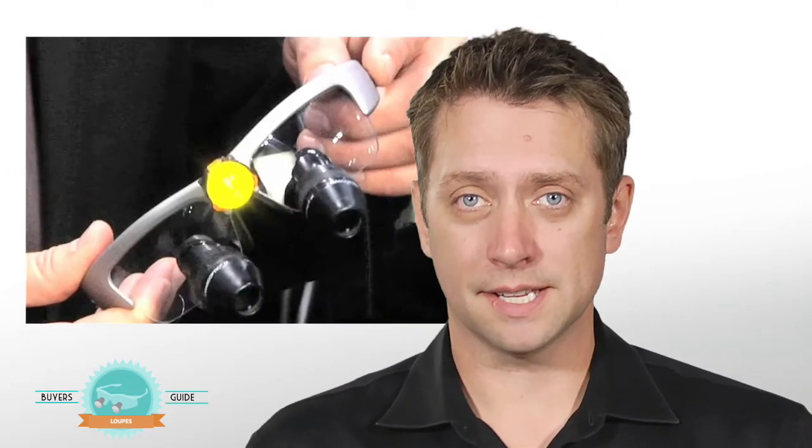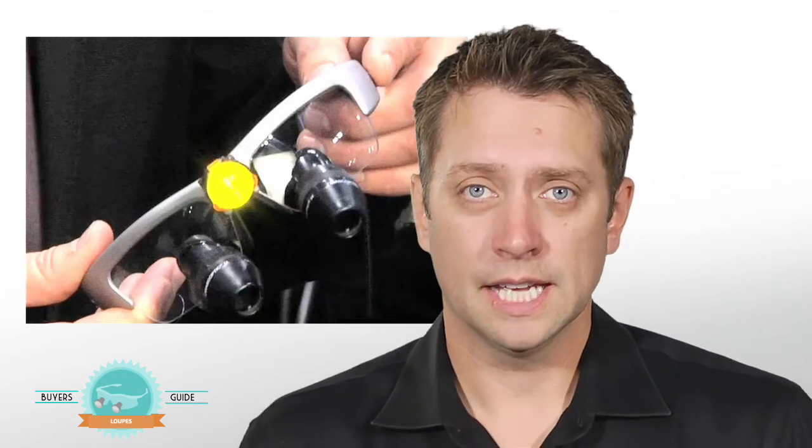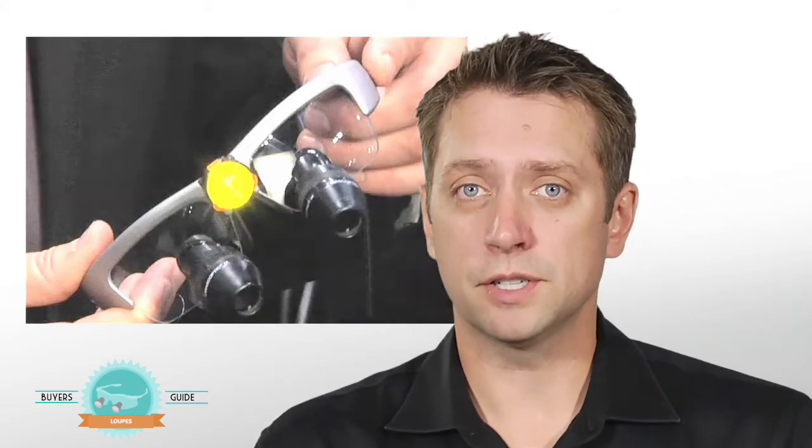Now some companies have options where there's an LED light attached right to the frames and there's a battery built into the frame. Others have cords that run down to a nice concise little battery pack hooked up to your belt. But it'll definitely help with the clarity of what you're looking at.